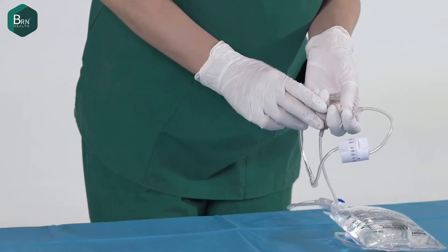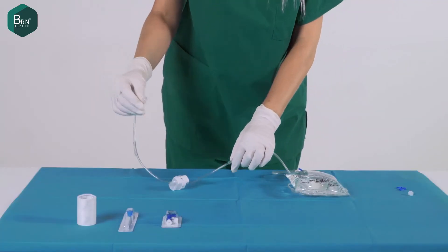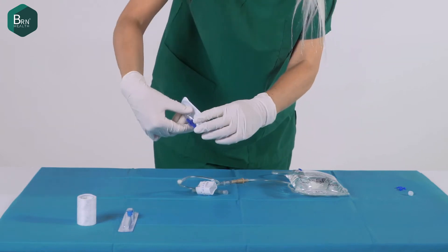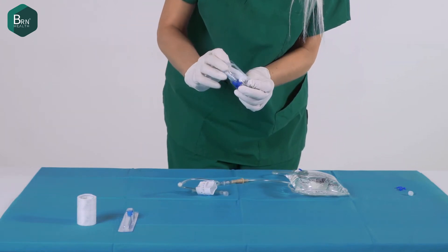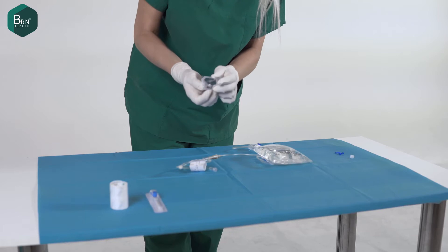IV flow controllers have universal male and female luer connections. Remove the spike cap and luer lock caps before inserting it into the IV bag.